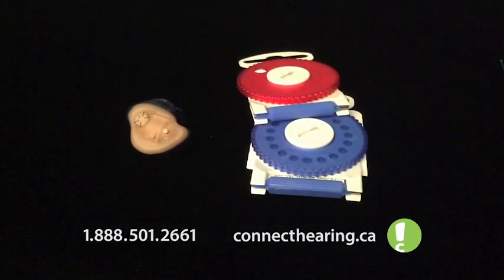Hearing aid maintenance on an ITE hearing aid, or in the ear, is something that you did have instruction on when you were fit with a hearing aid. But you were given a lot of information to deal with at one time, so we've got this little video to show you things you can do at home.